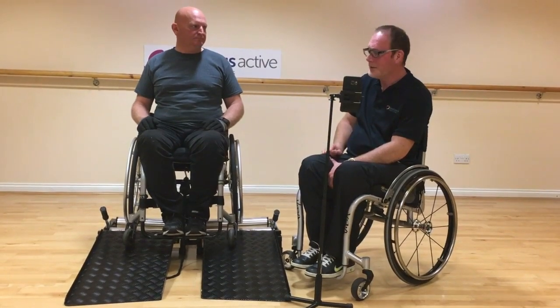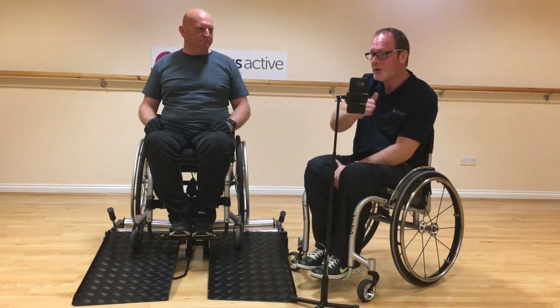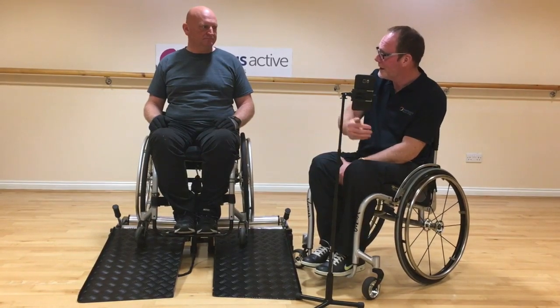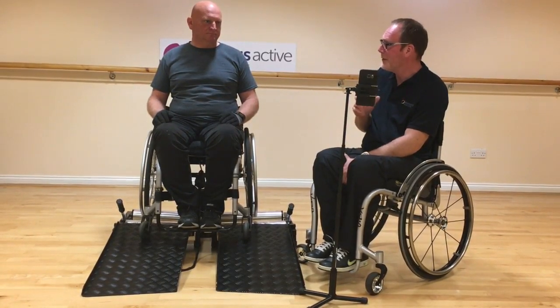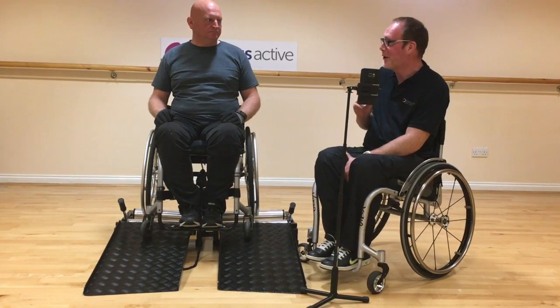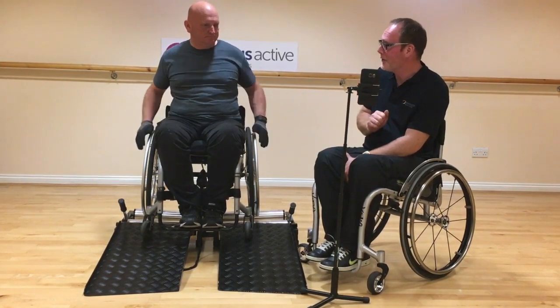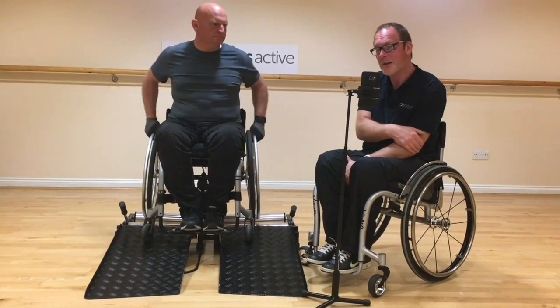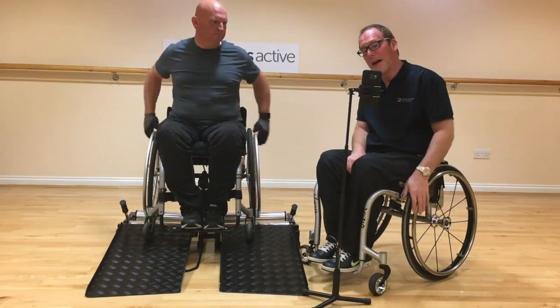You've put the heart rate monitor on. We've downloaded the app onto your phone — we cover installation in a different video. Once installed, you can download a variety of workout training programs. It's capable of recording your speed, distance, calorie burn, and heart rate. For your first workout, we recommend targeting a 5-minute push maintaining 3 miles per hour. It doesn't sound a lot, but for an average wheelchair user it should be quite a challenge. Keep your speed at 3 miles per hour and hold that pace for the full 5 minutes.